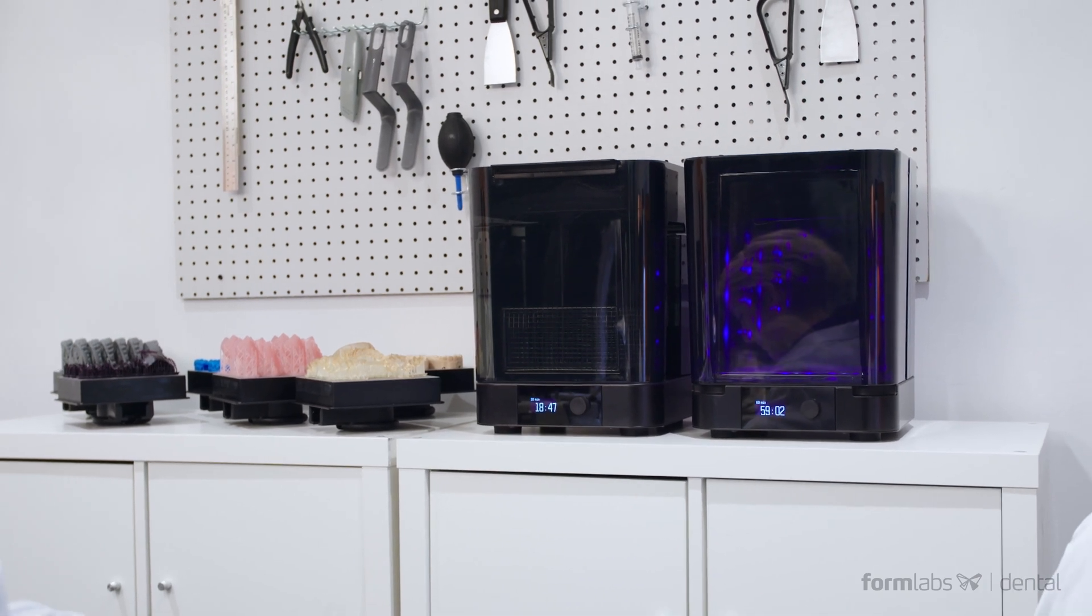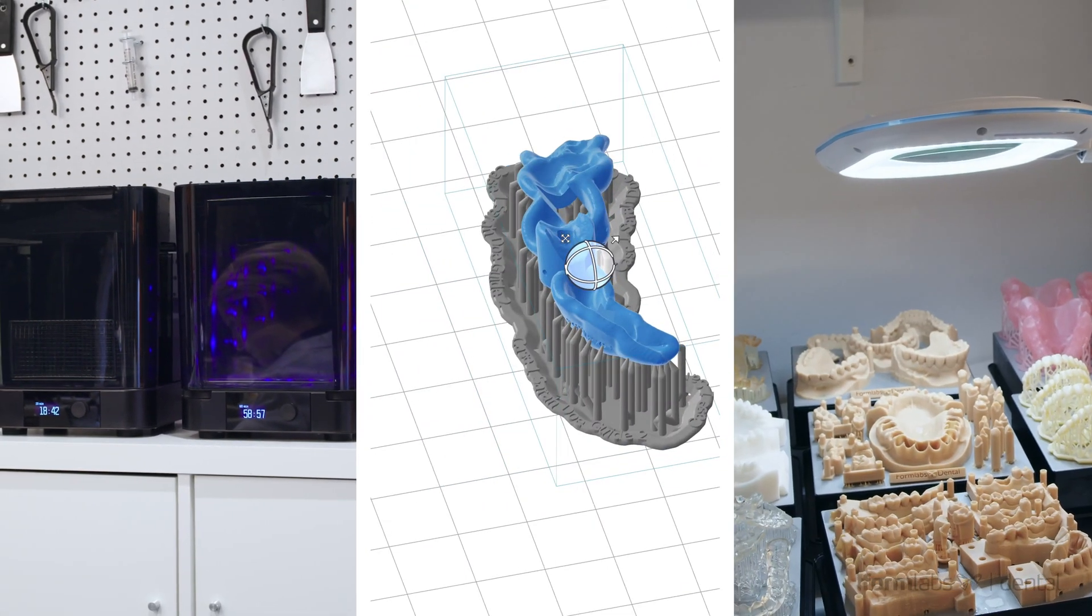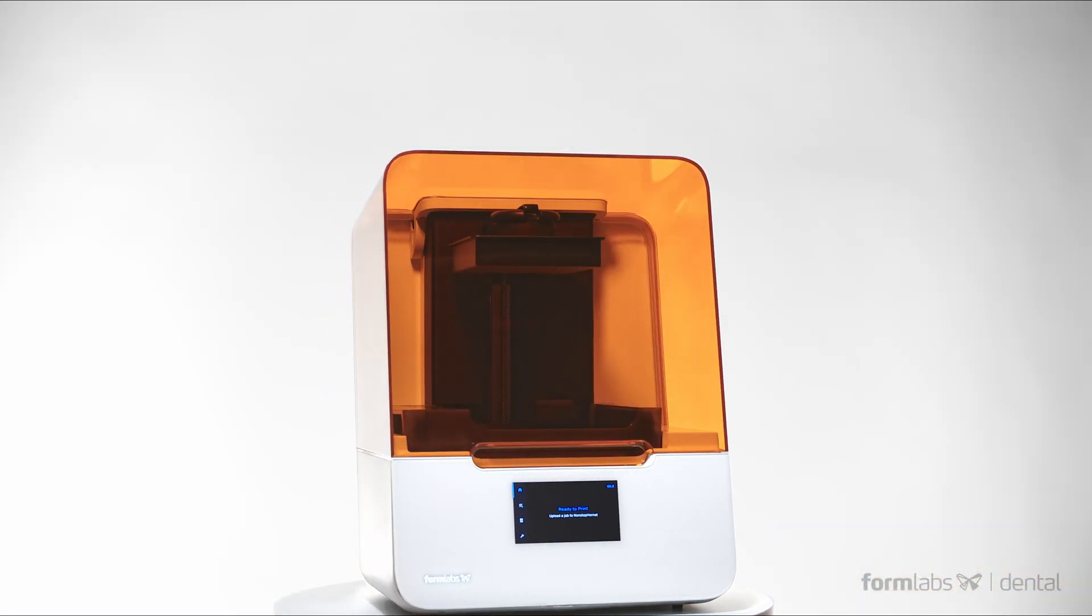you can trust that FormLabs hardware, software, and materials are tried and tested from start to finish to deliver the best clinical outcomes.